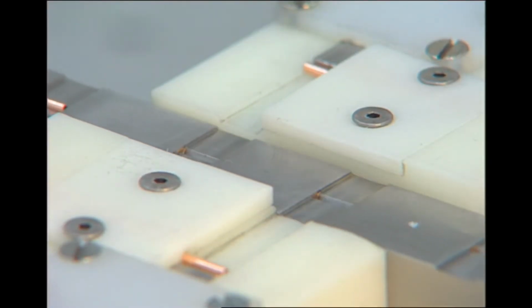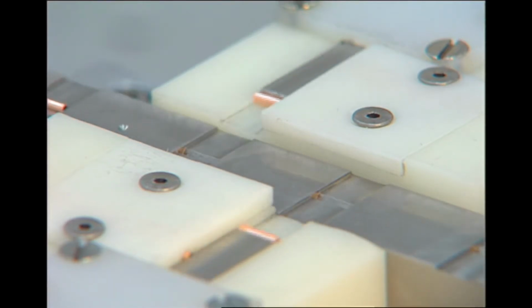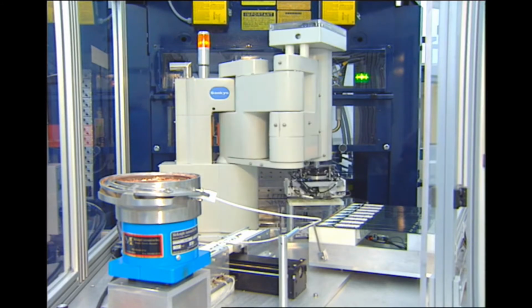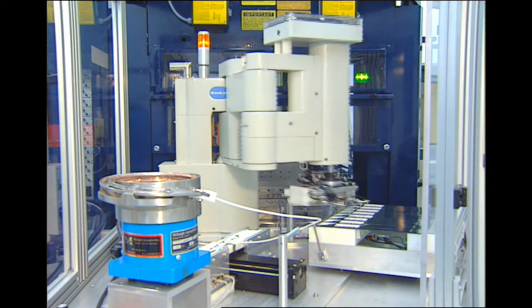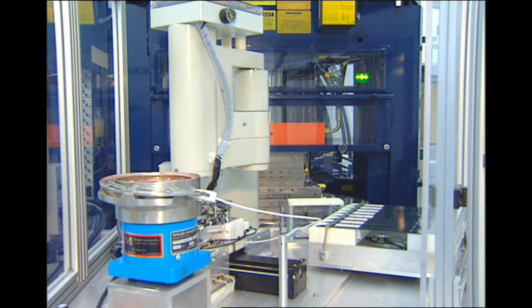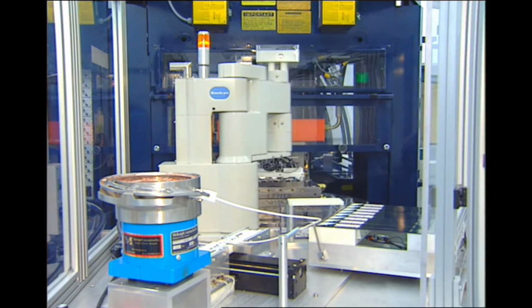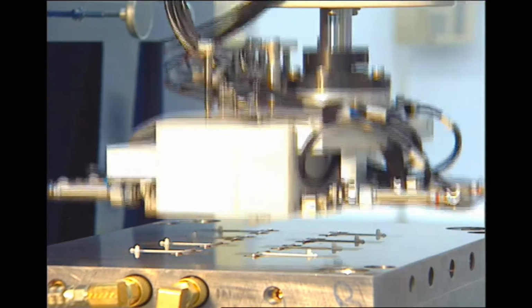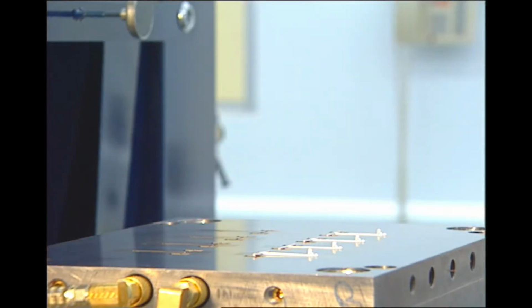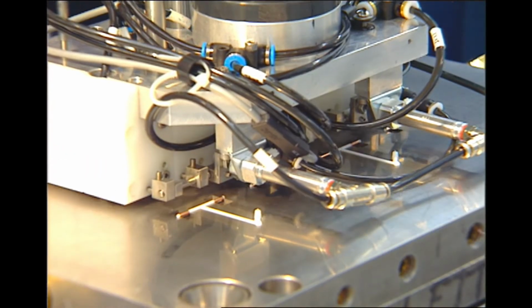The injection molding process takes place in a controlled GMP environment. Compliance with written standard operating procedures ensures that the process requirements are always met. High-capacity production systems keep throughput high and costs low. Sophisticated robotic systems coupled with state-of-the-art injection molding equipment ensure consistent and reproducible production control.